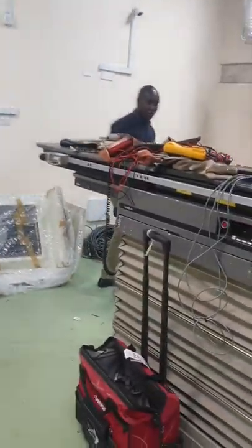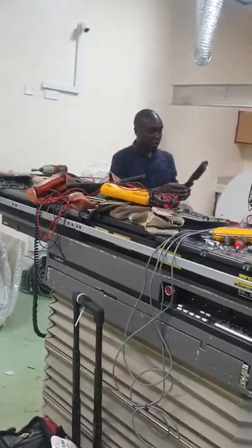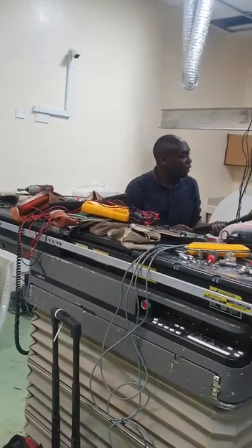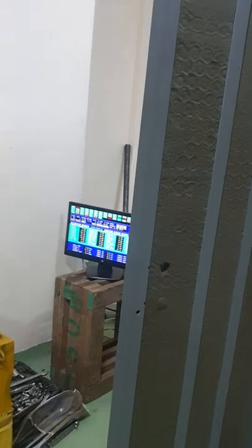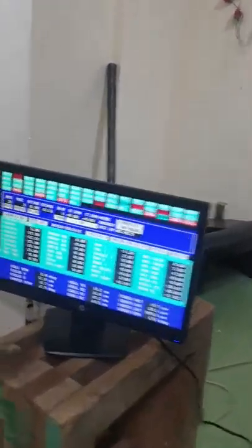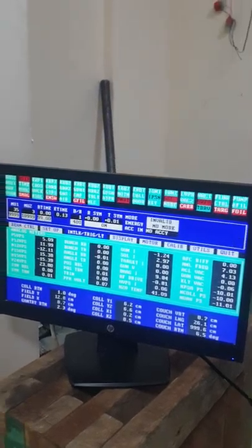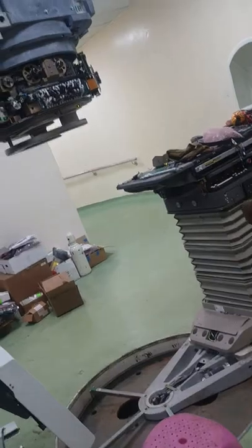It seems the couch is not moving. On the pendant — it is not moving. There is a hardware fault. The hardware fault is being overridden — it is switched there. It is on wheels, so those cannot move. It can't move. What about the gantry? It is not moving either. It can't move.